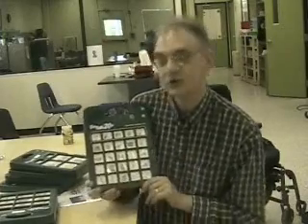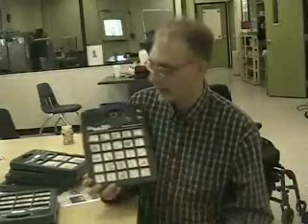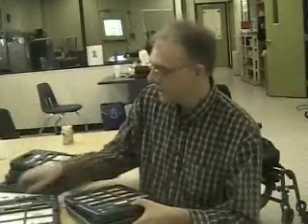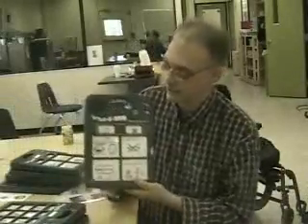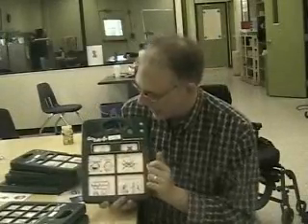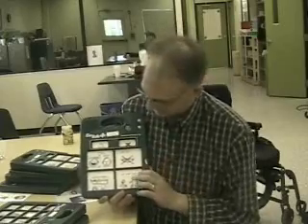But I just wanted to expose you to the GoTalk and show you a little bit how I use it. I use it in lessons about body and hygiene. I also have one here of basic expressions. You know, I feel happy, but I need to be quiet. I won't bite. I want to get down out of my wheelchair. I need to be changed.